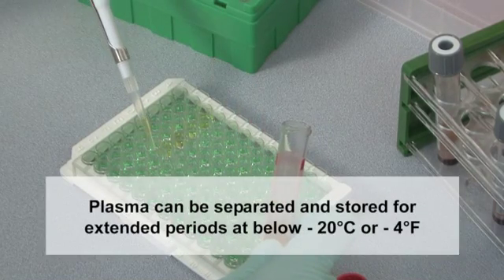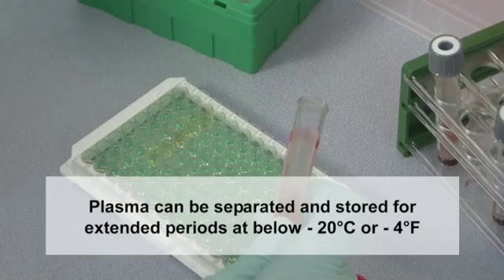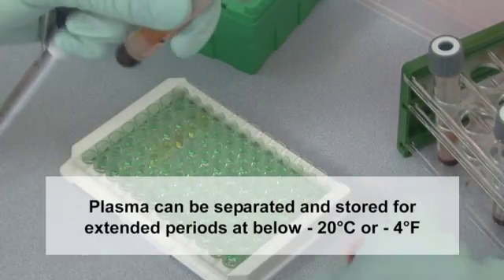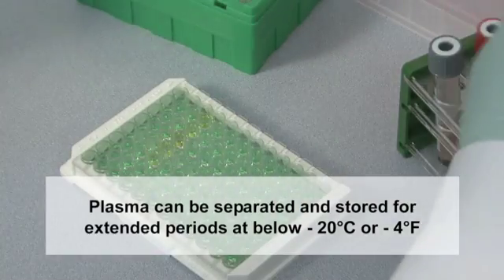The plasma can also be separated and frozen below minus 20 degrees Celsius, or minus 4 degrees Fahrenheit, for extended periods.